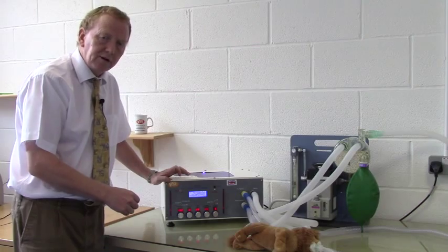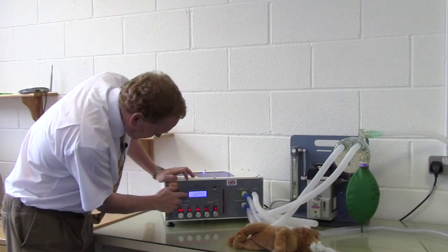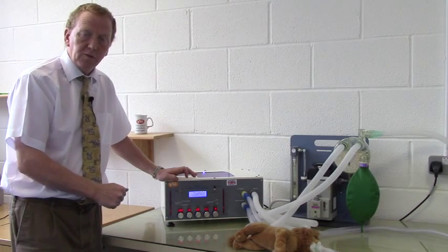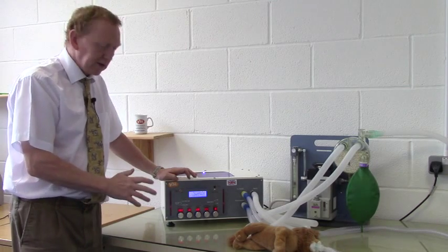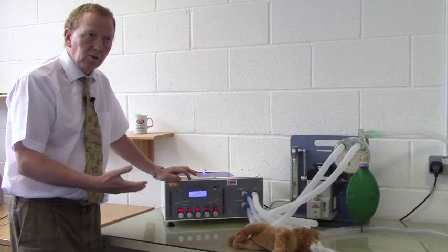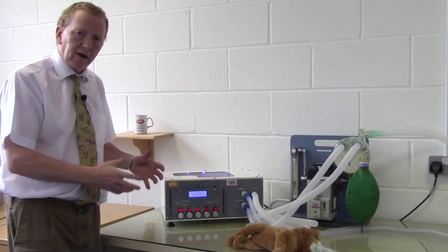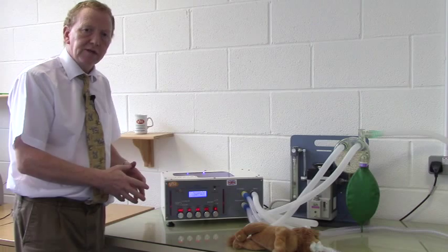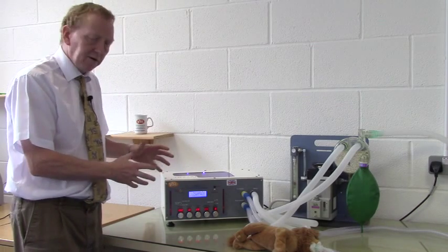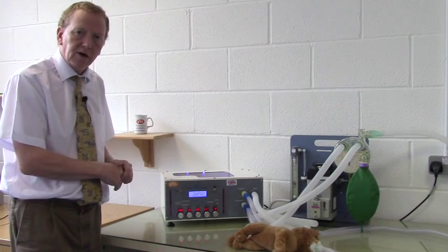Having reduced the tidal volume to 150 mils, we now find that the maximum airway pressure reached is 12 centimetres of water. This is ideal for most dogs and cats of normal physiological behaviour. If there are other conditions that affect lung compliance, then you may vary this, but for most animals I would stick to 10 to 12 as a target pressure.